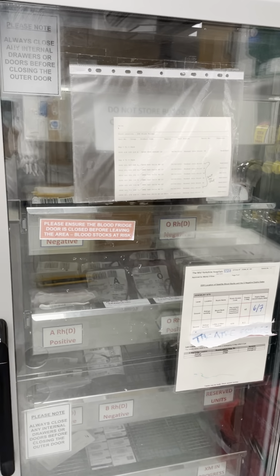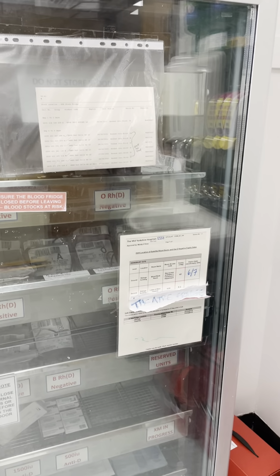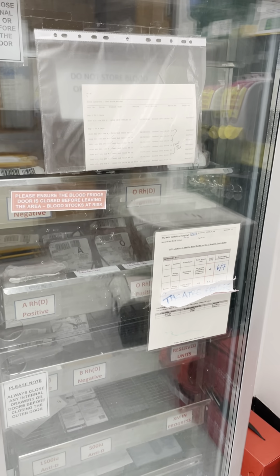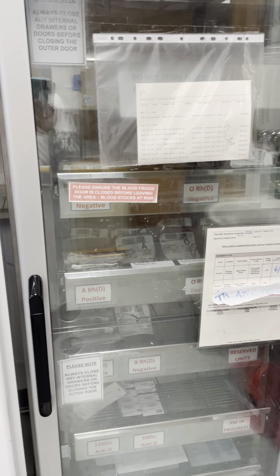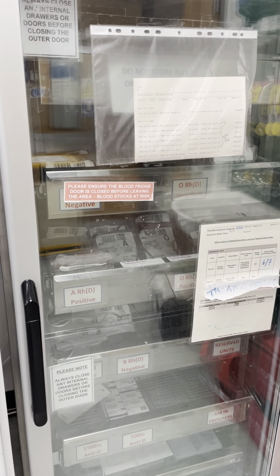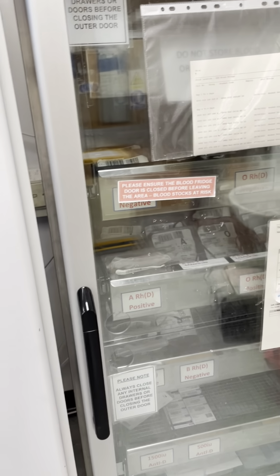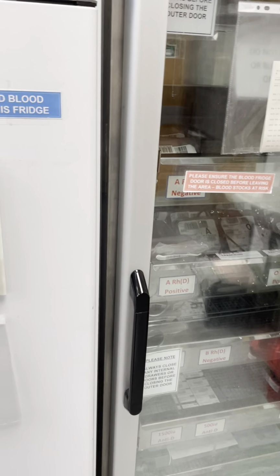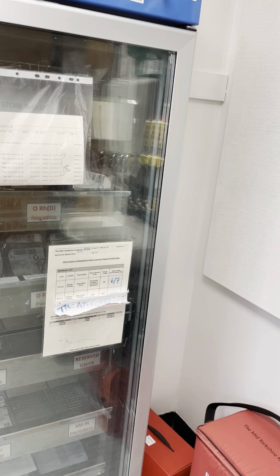These must be returned to the lab within 24 hours to comply with the BSQR regulations, and also to maintain traceability. When we've received the patient details on the tag, we can retrospectively issue the unit to the patient, just to also help us maintain traceability. So that is our emergency units that are kept on some of the wards within the hospital.